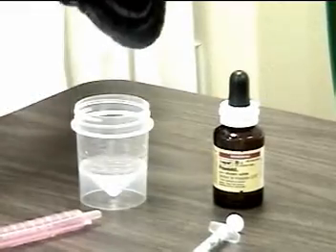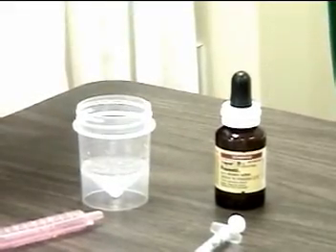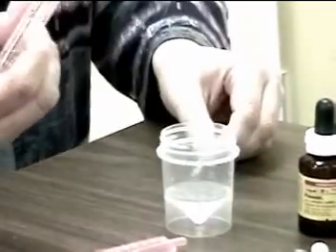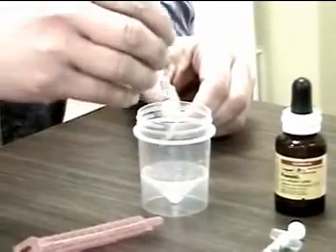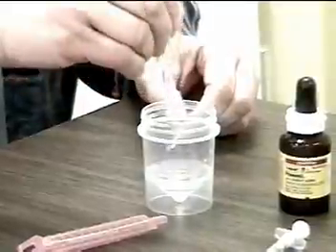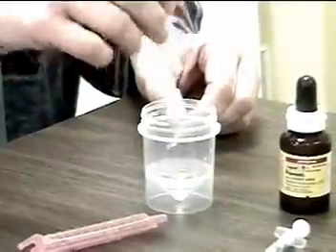At this time, I would take the unit dose of normal saline, take the cover off, and squeeze that medication into the cup, then put the cap back on.